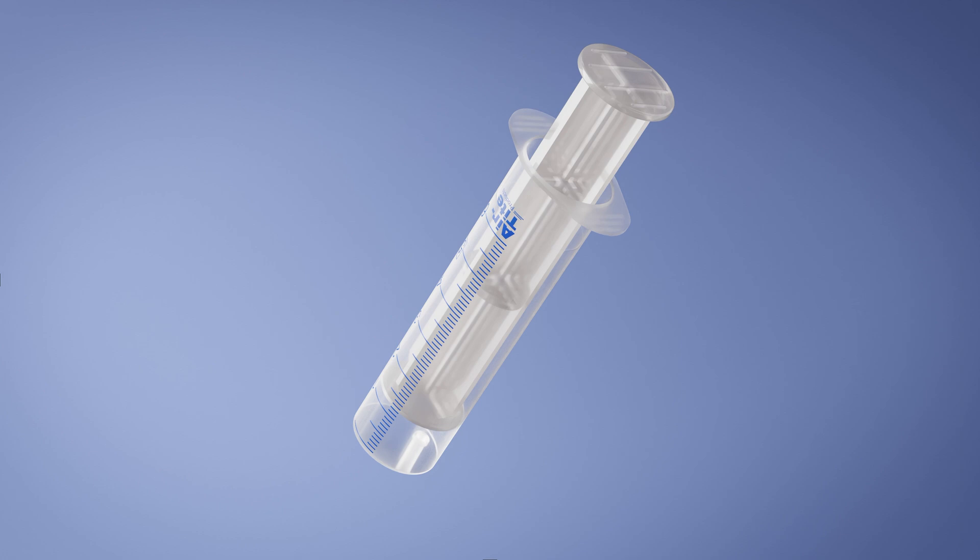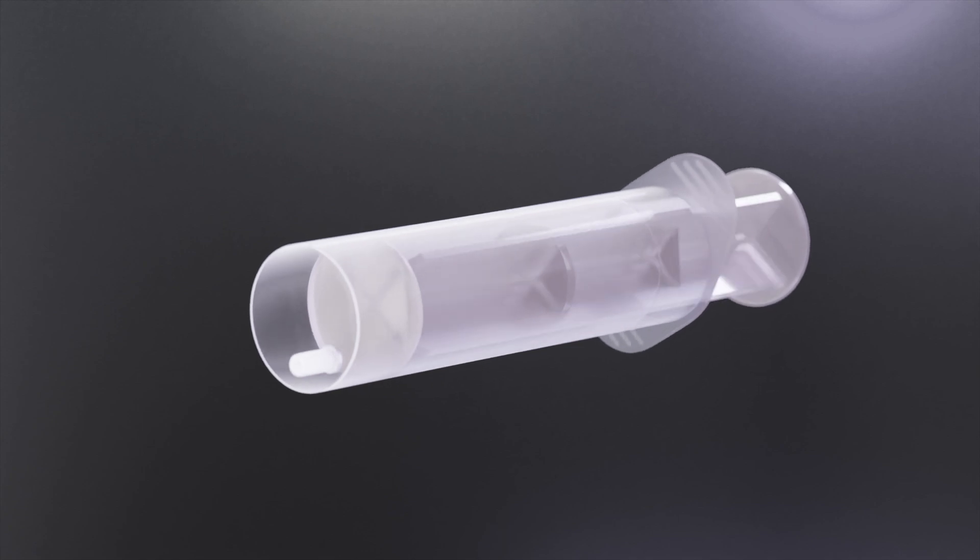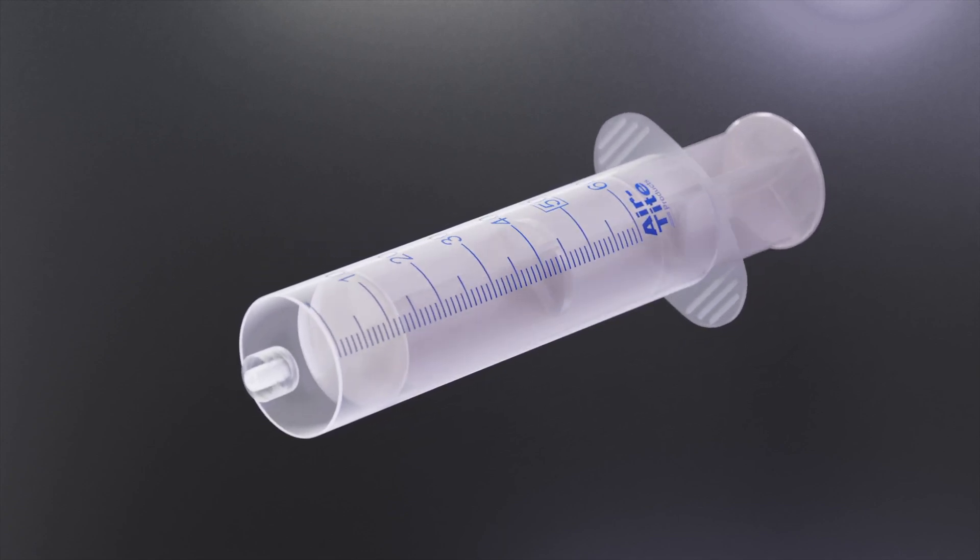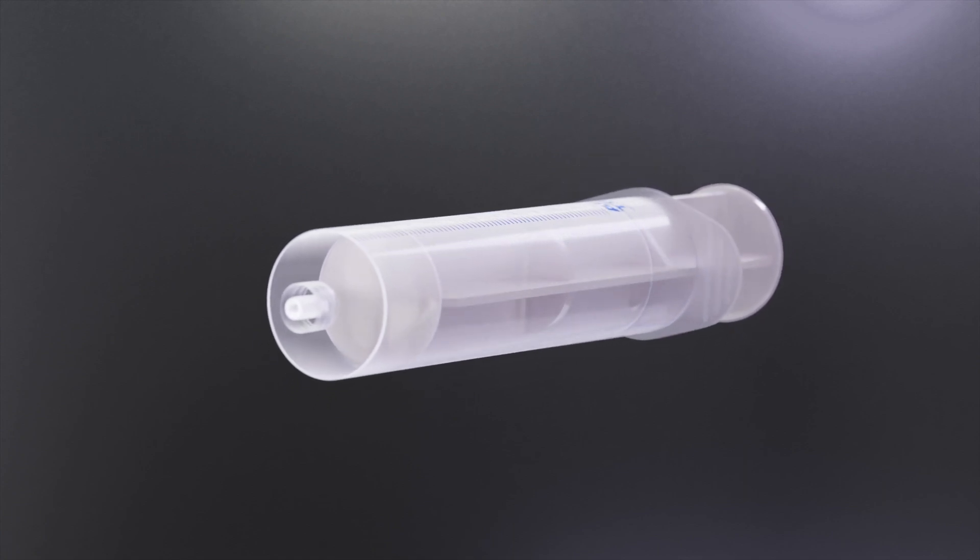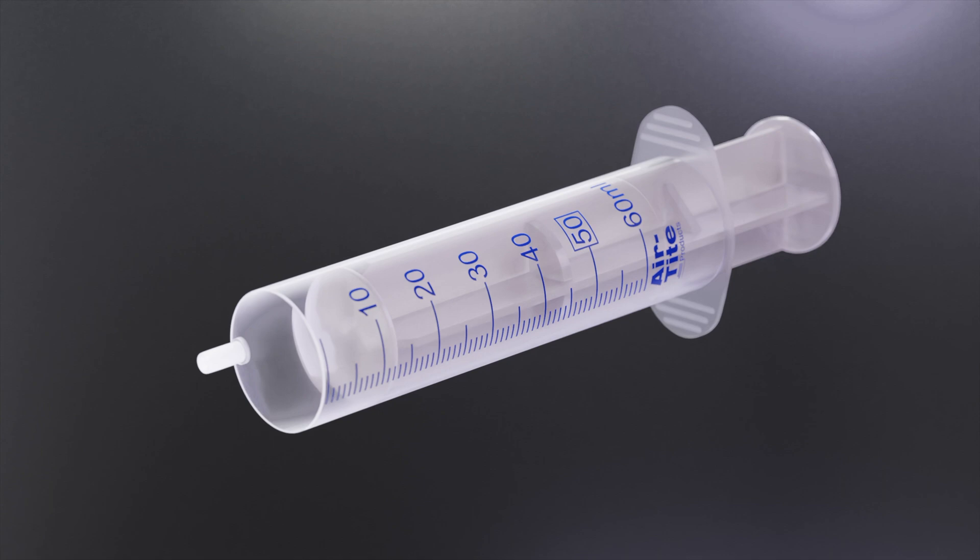A syringe with these qualities is particularly valuable for applications such as equine breeding. After months of anticipation, Air-Tite Products is thrilled to announce the launch of our new Air-Tite Premium Veterinary and Laboratory two-part 50-milliliter syringe, replacing the discontinued previous top-selling syringe.